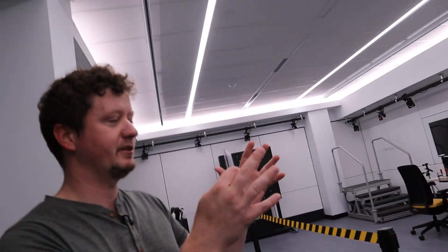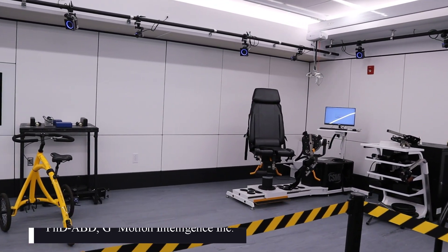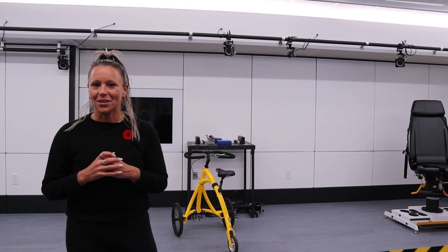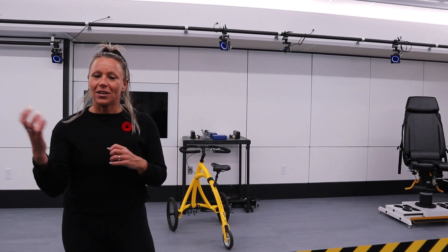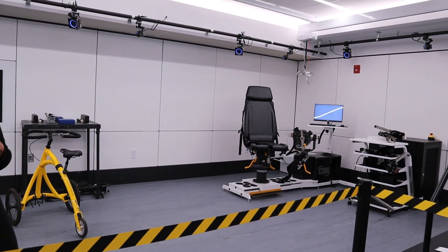The one who's going to help us learn all about this is Alicia. Hi Alicia. Welcome to the Performance Lab. We're going to learn a little bit more about how to track arm wrestling using motion capture and our force dynamometer. It's kind of cool and I'm a little bit excited because I think this is the perfect lab for something like this and we might have to invent a handle or something. We might not have the piece that we need, but that's okay — that's what research is all about.